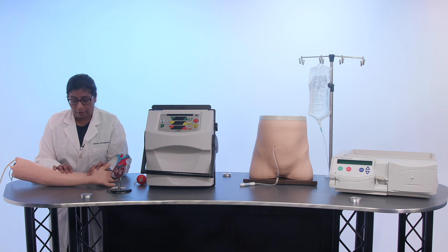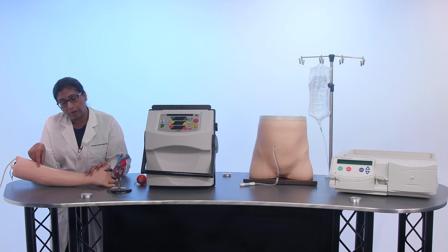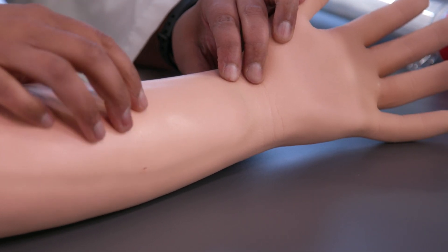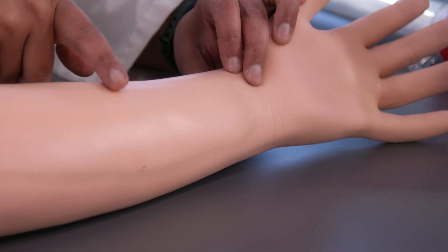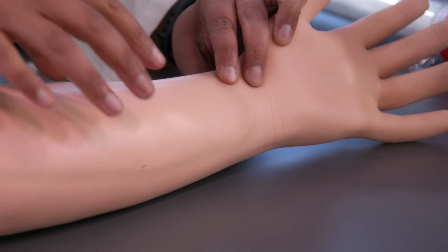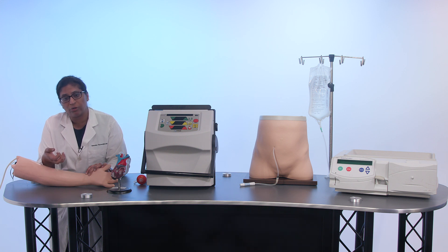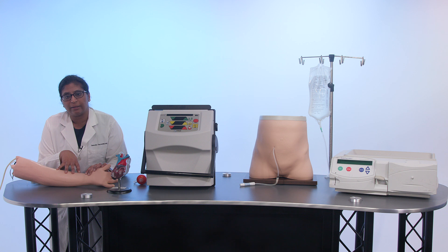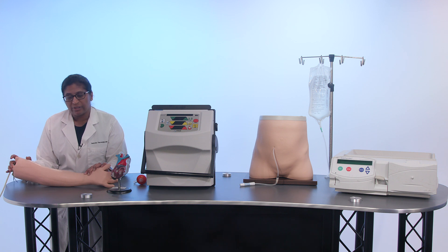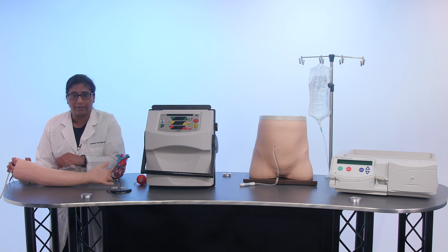The lower part of the arm in this model is the hemodialysis graft. When veins in the arm are too small, we put a piece of synthetic material tubing called a graft in to connect the artery and vein. The same principle applies as with the fistula — dialysis nurses would put two needles in during the session, remove them at the end, apply pressure, and you'd have a bandage for about three to four hours. The benefits include reduced risk of infection and no external components during the dialysis session.